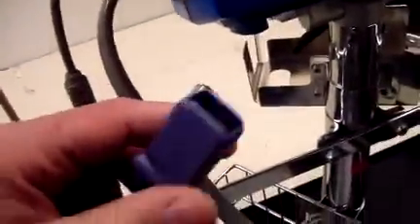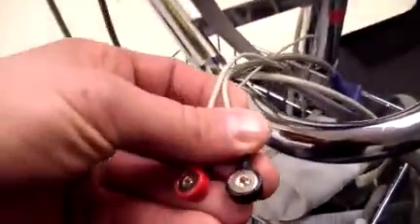It does have a BP cuff. It has ECG and it has SpO2. I do have the cable, but I don't have a finger sensor for it and I don't have any of the sticky electrodes, but everything else is with the system.